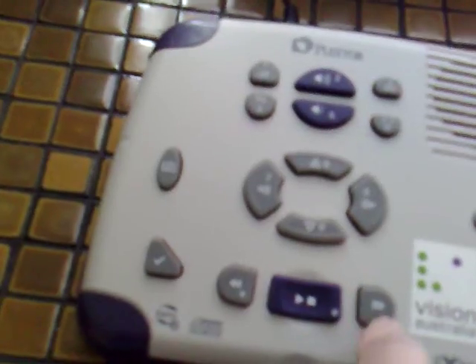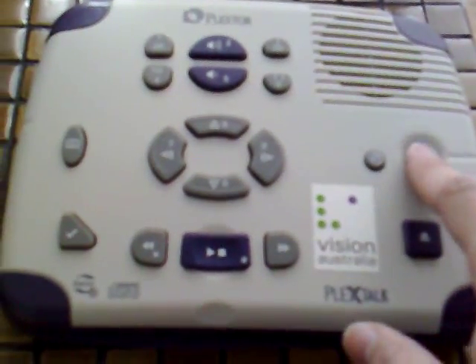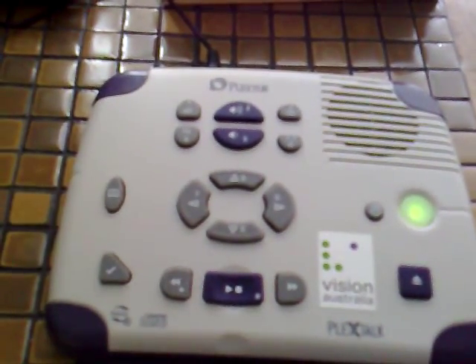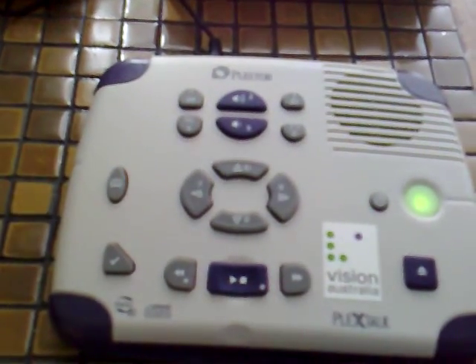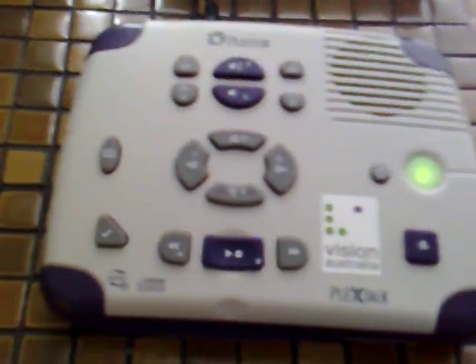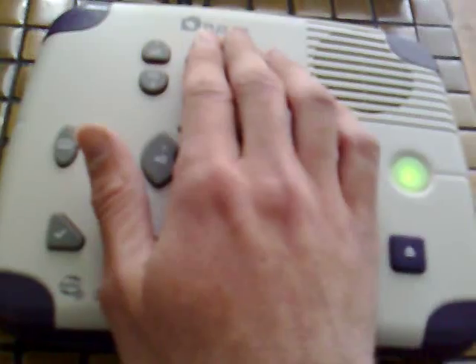The unit can run on AC power or batteries, and it's currently plugged in. I'm going to now turn the unit on. The sound you just heard was just the machine starting up, and there's no disk in there. Let me turn the volume up a little bit.